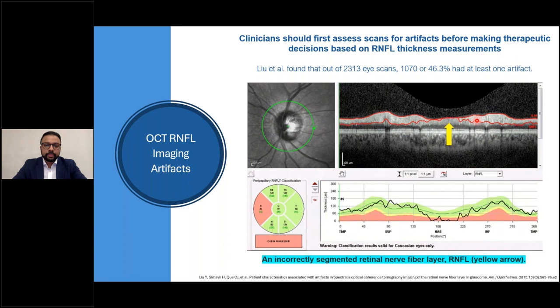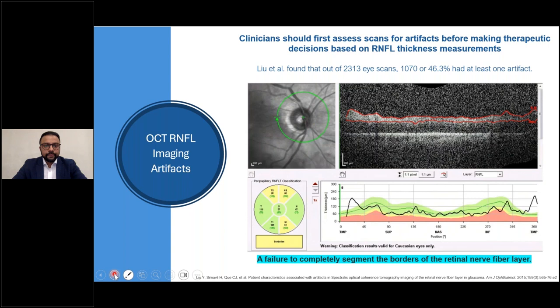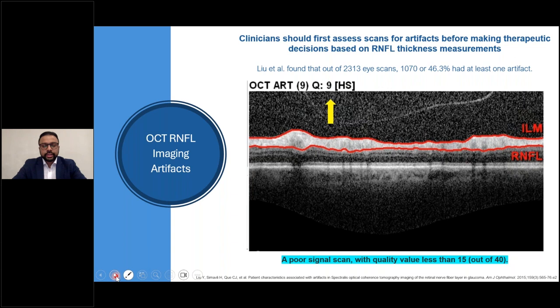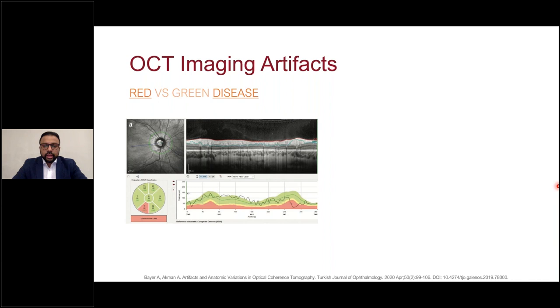Here's another example of a failure in the RNFL segmentation line — this is easier to correct, and re-scanning is likely sufficient since it's not a repeatable defect. Another example shows failure to completely segment borders of the RNFL and ILM, probably due to poor imaging quality. And another example is just poor scan signal — on the Spectralis, that's defined as a quality score of less than 15 out of 40. If artifacts go unnoticed and we're not critical when evaluating B-scans, this leads to red disease and green disease, causing misinterpretations.